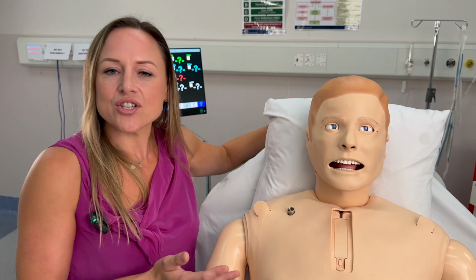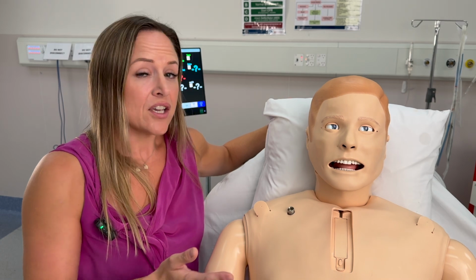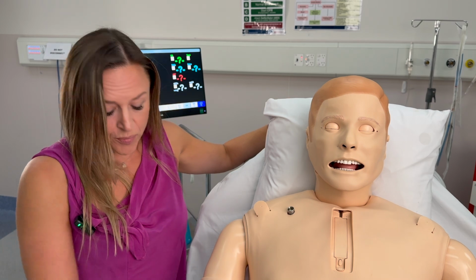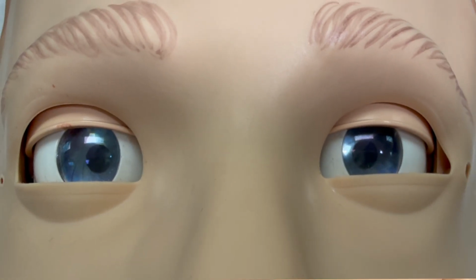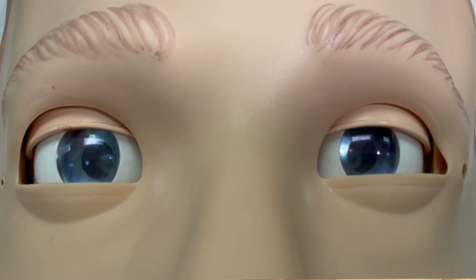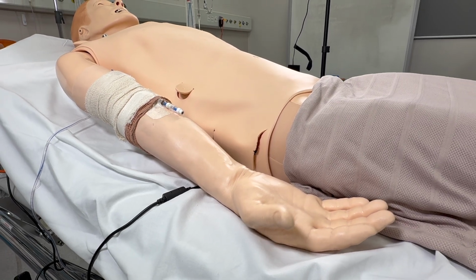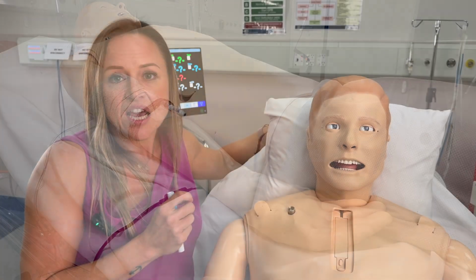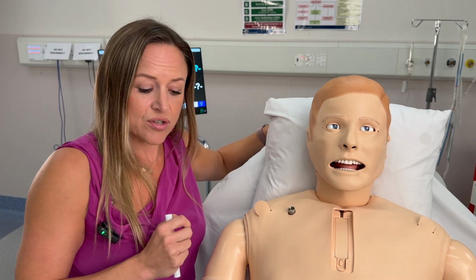He can be conscious, alert, with his eyes open and responding to questions. He can also have his eyes closed and be unresponsive. His pupils are reactive to light, so you can use a pen torch, and the shape and size can change asymmetrically or symmetrically. Frank can also seize, which is simulated by some shaking of his upper extremities. We can take Frank's temperature, however that will be simulated and the response given to you.